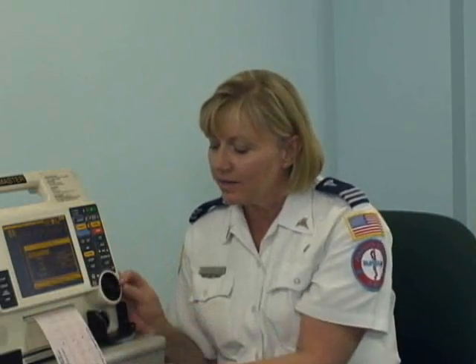This is going to take some practice, so on every patient over the next few weeks you should be running an EKG and putting in the data on these patients so that you can get the practice, that you can get this down when time is critical. And remember, we can multitask. While somebody is setting up the Lifepak 12, as far as information is concerned, we should be doing all our patient care activities, including making sure we have good lead placement to get a good 12 lead EKG.